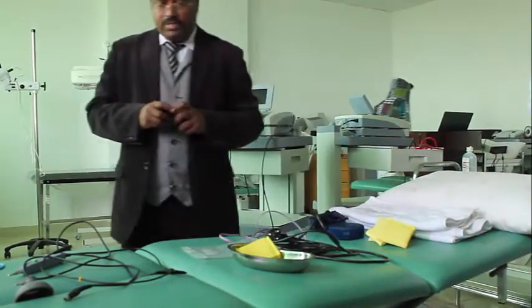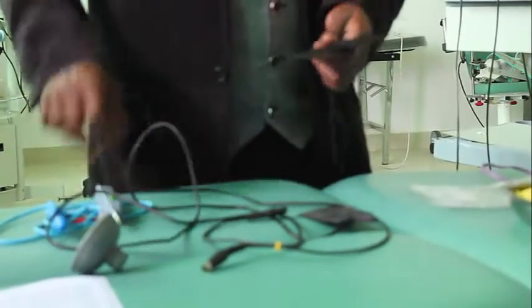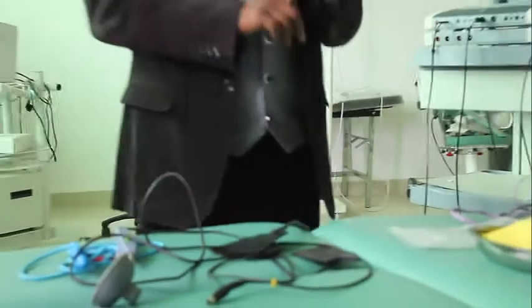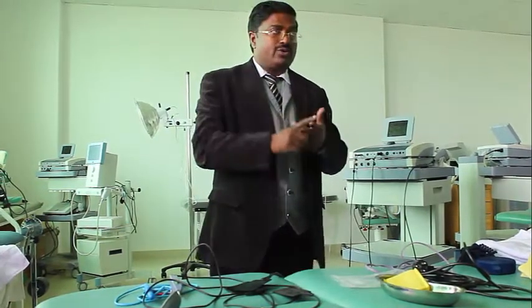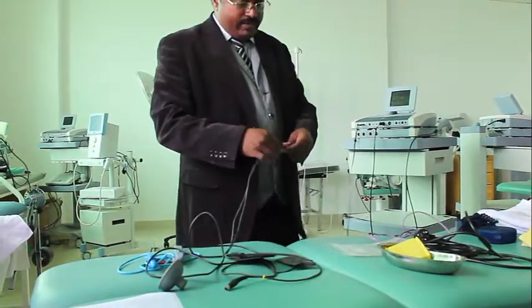And there are four types of electrodes: carbon rubber electrodes, vacuum electrodes, anal electrodes, and pen electrodes. More than this are also available, but they are not available for you here. There are aluminum foil electrodes, metal electrodes, vaginal electrodes, oral electrodes, many types of electrodes, but whatever is there, it is here.